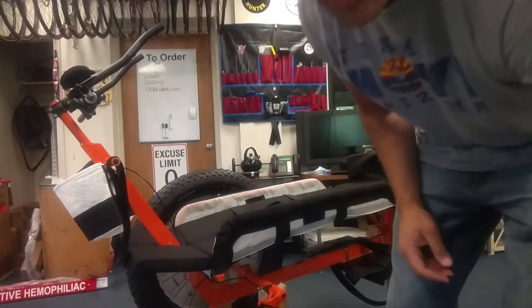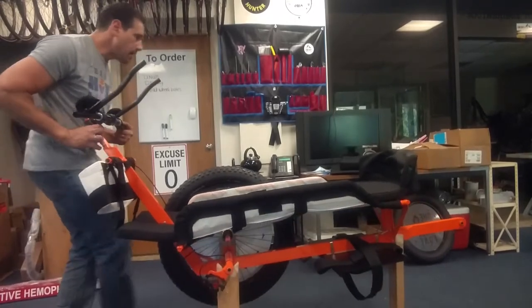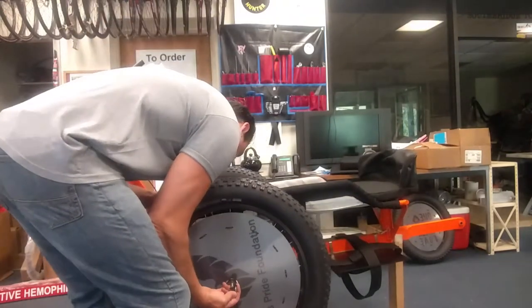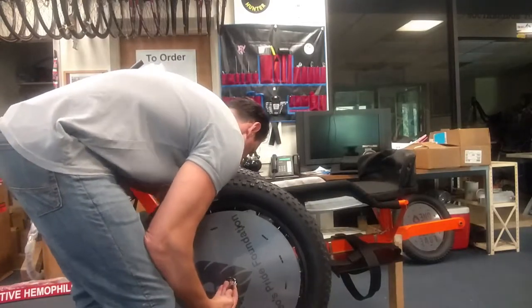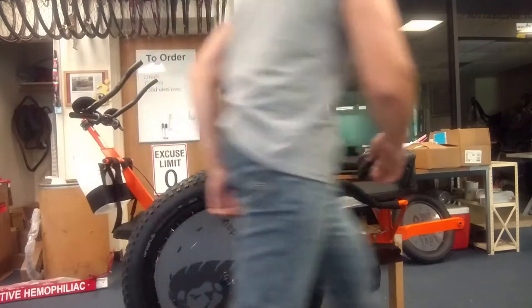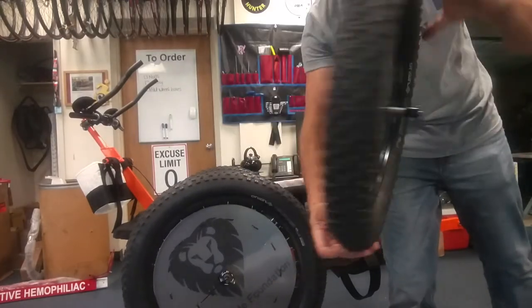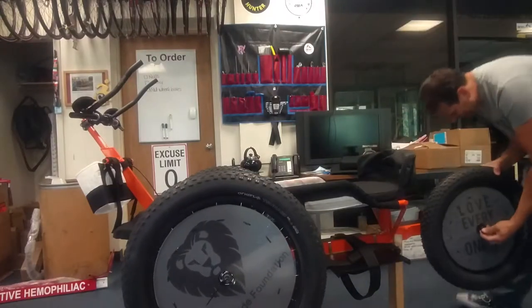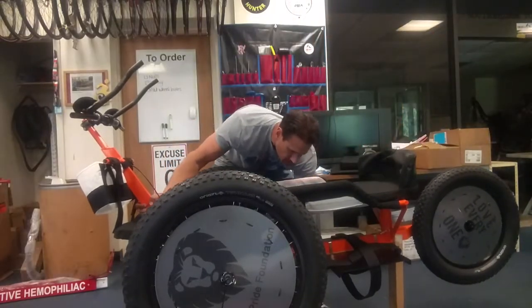The other thing — the sunshade. I'm going to put the wheel on now and take this off the stand. So the wheel's on. Let me get the front wheel. Look at this bad boy! Not bad. And then you turn it around — boom. I love wheel covers. So there you have that. Now I'm going to attempt to take this off the stand as carefully as possible.